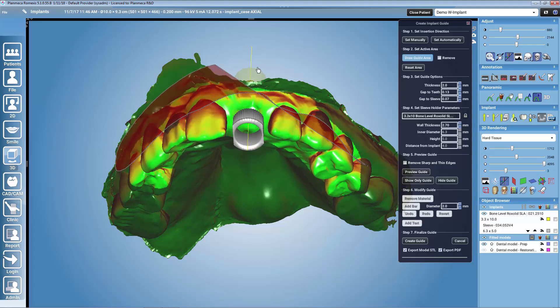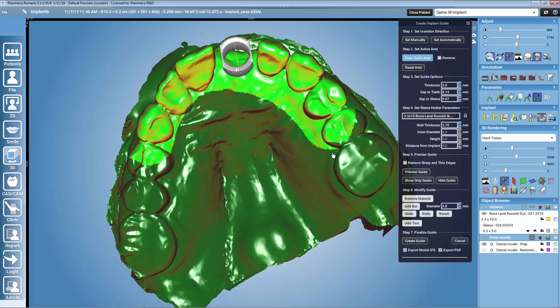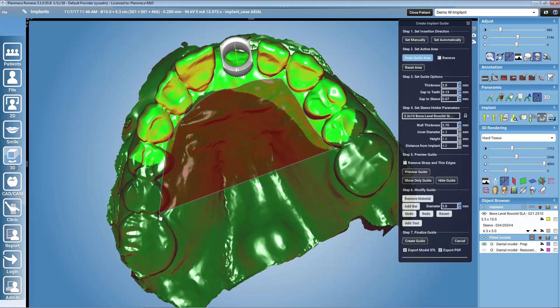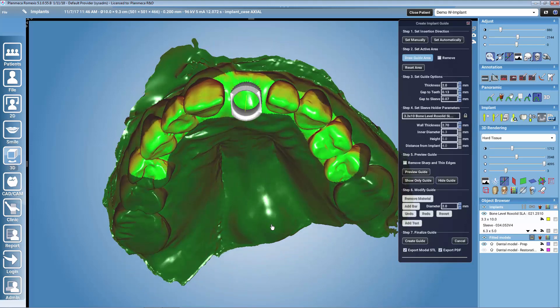Mouse left click adds, mouse right click removes, and with the mouse wheel you can rotate the model. If you don't have a mouse wheel, you can also use the Alt button and the left click. After this, we have guide options including a thickness value. Generally a thickness between two and three millimeters is recommended. The two gap parameters affect the fit of the sleeve and the fit of the guide, so those you might need to adjust depending on which 3D printer you will be using.